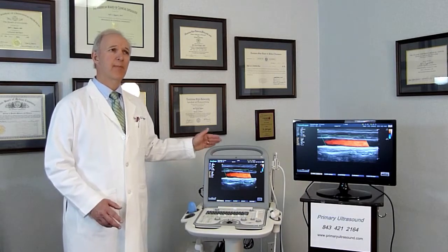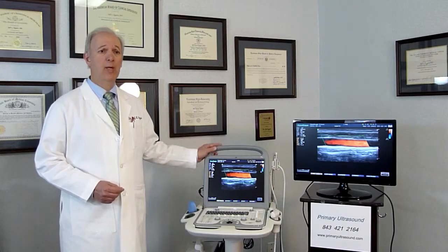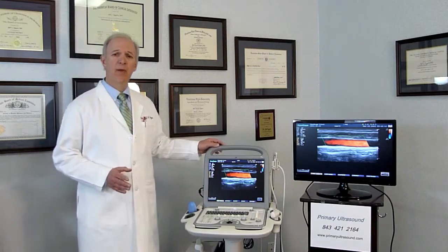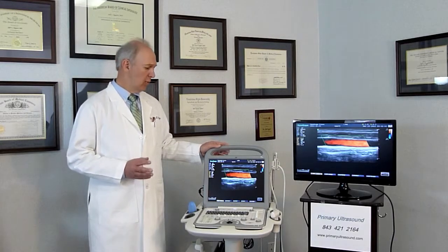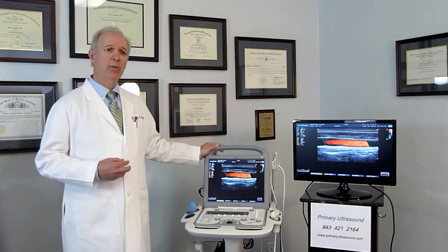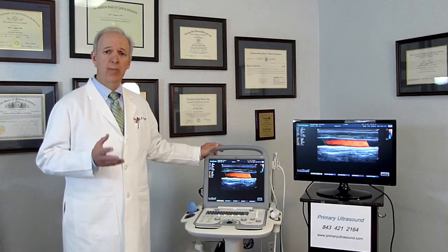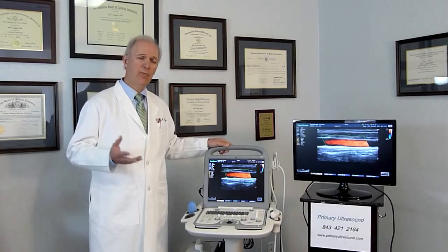It has several particular features which give it unusually good image quality: high density probes up to 512 elements, broadband transducers. It has an advanced software package which rapidly processes the ultrasound beam to give us excellent quality. It also is a Linux-based system — very stable — and it was optimized to rapidly transfer images to your data storage system for later analysis.